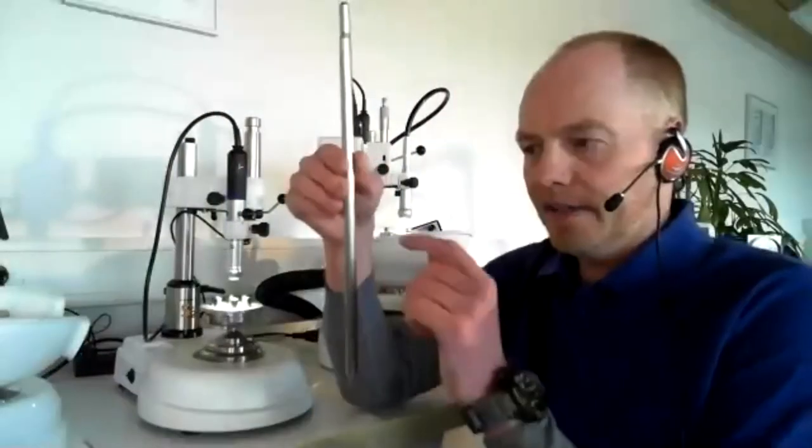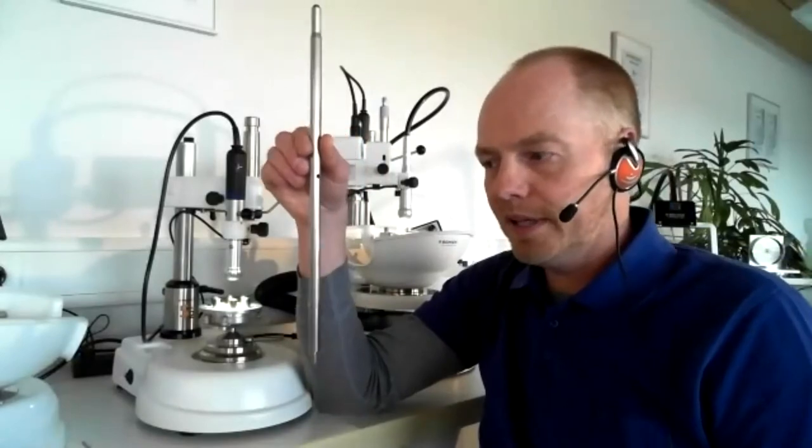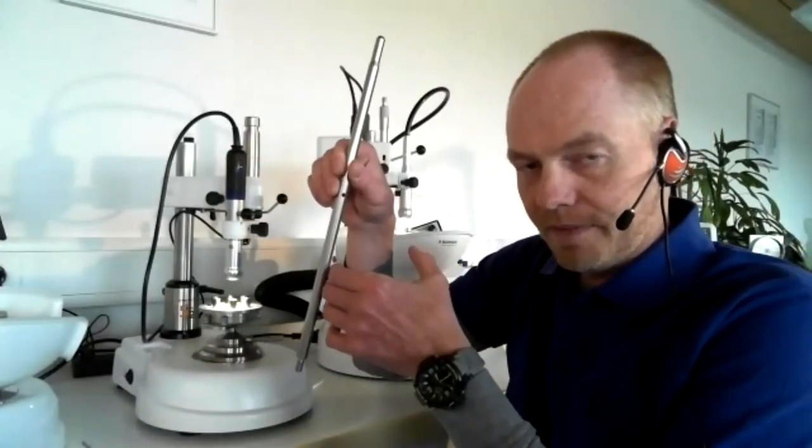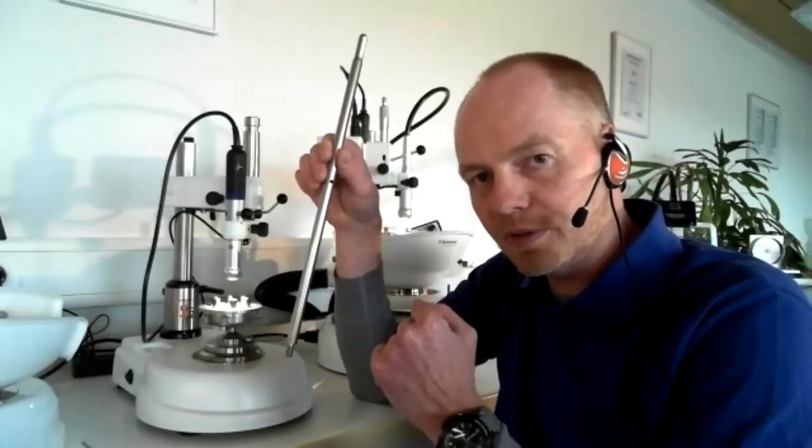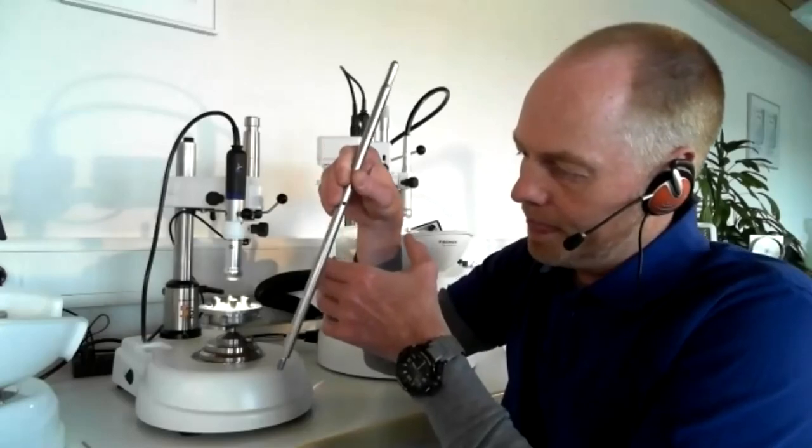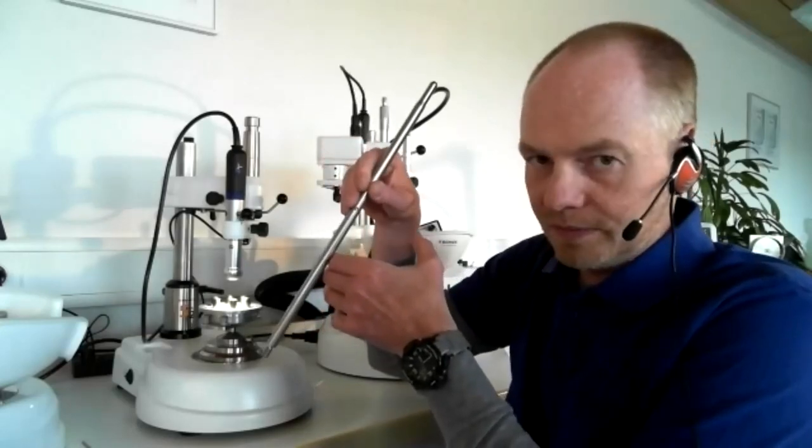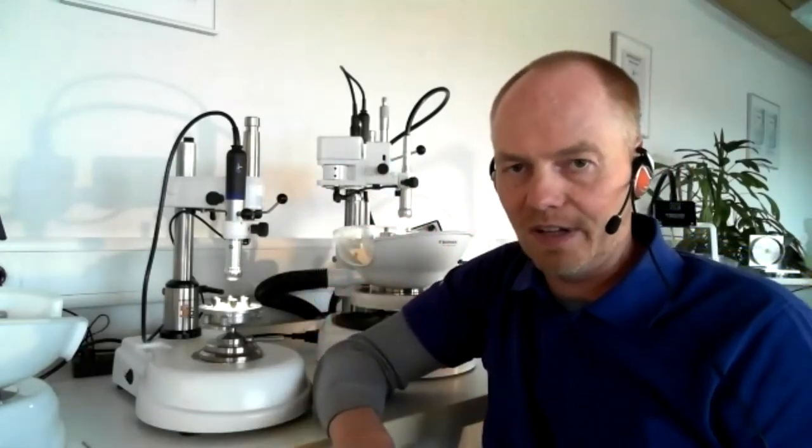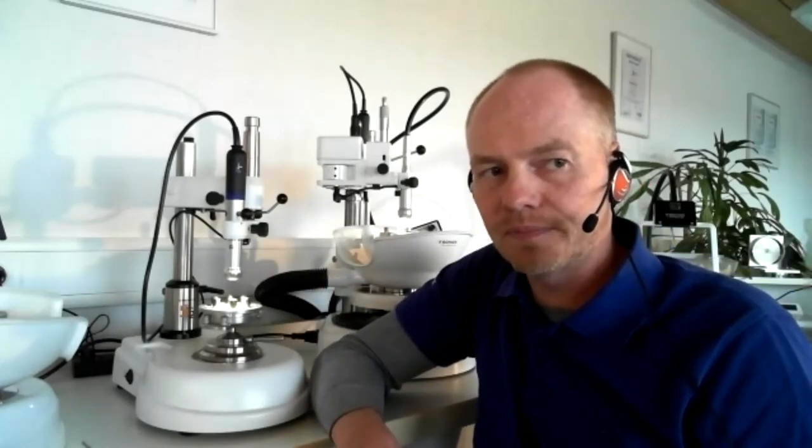For example, let's say this is the diamond tool and when you start to grind, for example, a telescopic crown or an implant abutment, the diamond tool starts to do this. You will never have a 90 degree milling surface. There will always be some kind of angle inside your milling because there is a little bit of play in the bearing system.